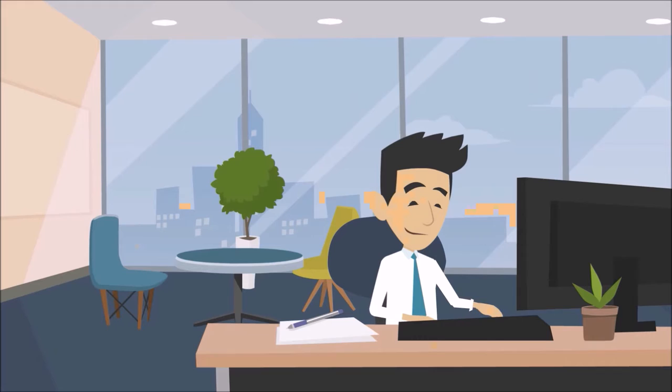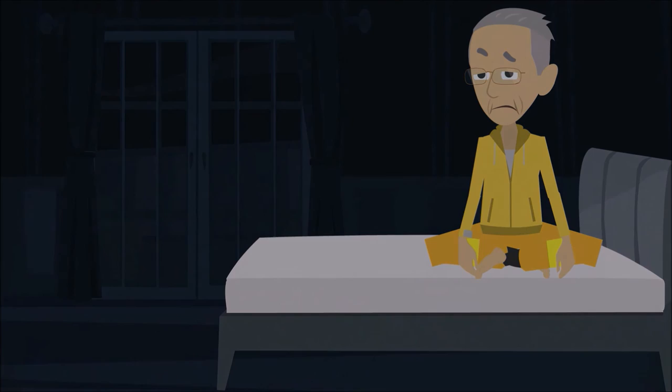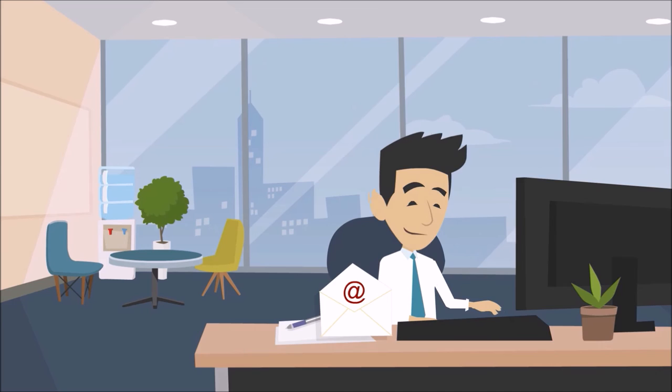We send chosen friends and family a daily email to let them know you're up and about, and in the unlikely event that the system gets disconnected, perhaps a power cut or internet outage, we'll send an email to anyone you've chosen, so even if we haven't got you covered, your family and friends will be able to deal with it.